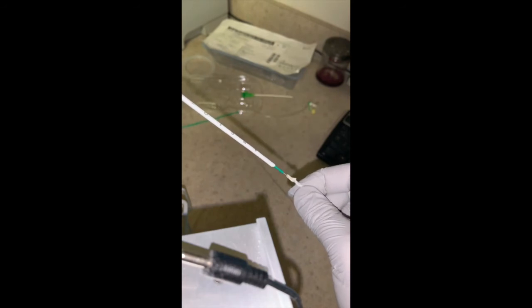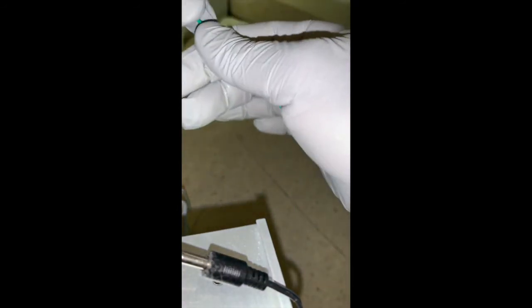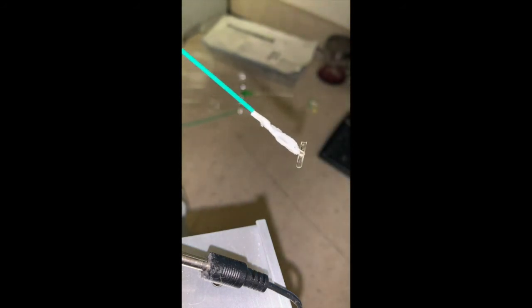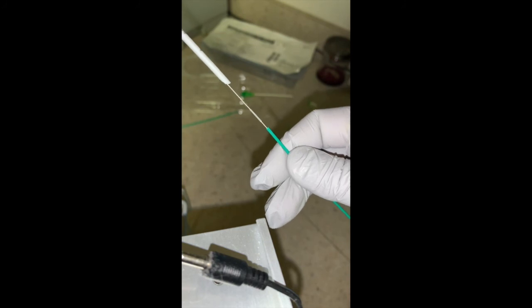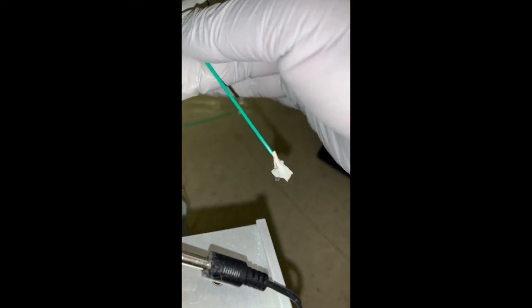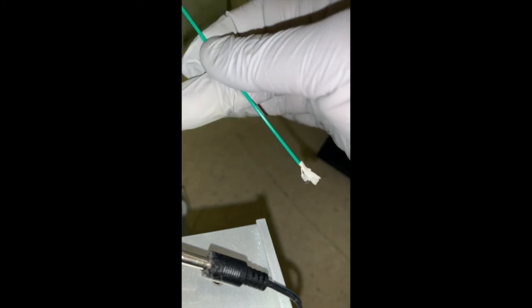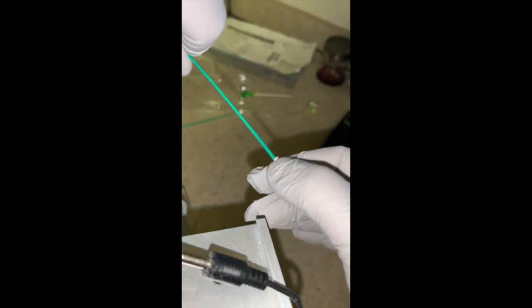As you start to pull, the collagen is released right there. As you keep pulling, you will see the green tamp tube and then the rest of the suture. There is the foot plate, and there's the collagen — the foot plate will end up right inside the wall of the artery abutting it, and the collagen will start to expand as it comes into contact with fluid outside. As you pull up, you keep guitar string-like tension on your suture, hold the green tamper and push down on the collagen to make sure it is deployed where it needs to be.